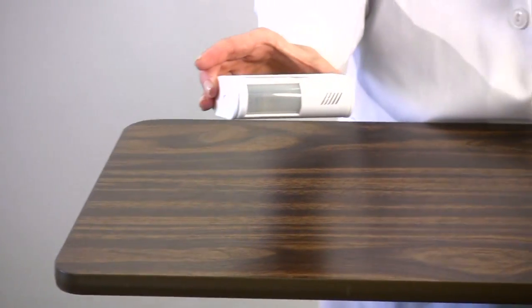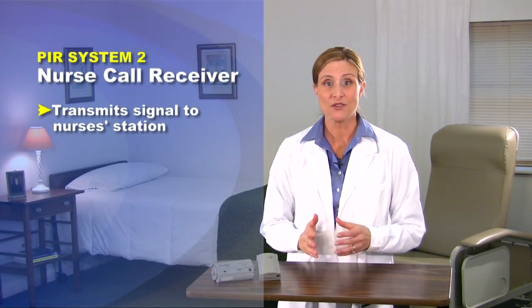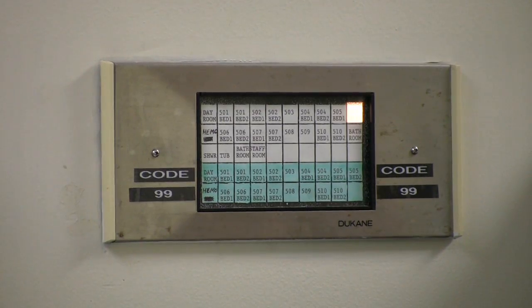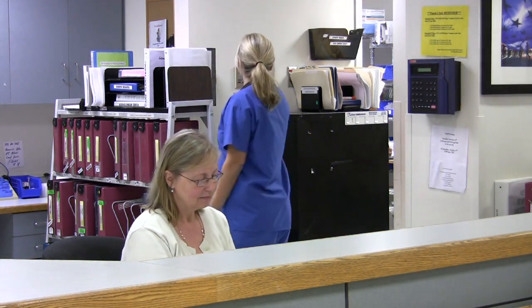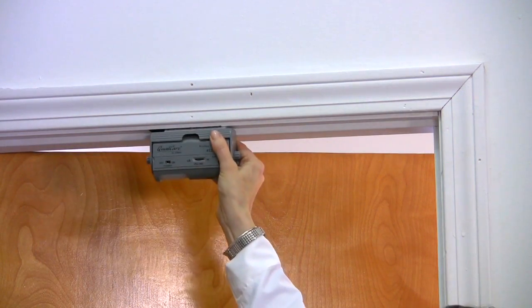System 2 is a variation of our basic PIR system but upgrades it from a local bedside alarm to an alarm that can transmit signals to a nurse's station. Another important feature is the ability to set the local alarm to silent while sounding only at the nurse's station. It allows the alarm to deliver a further reaching warning to patients in danger of falling. It can be placed on the side, at the foot of the bed, or at the headboard. You can even place it above a doorway for patients who tend to wander out of the room.